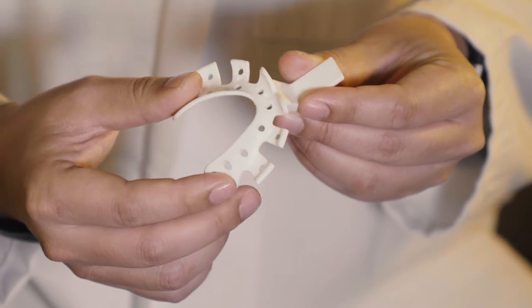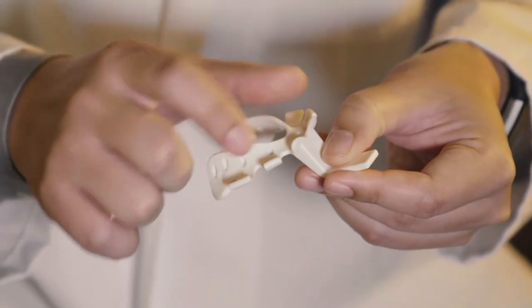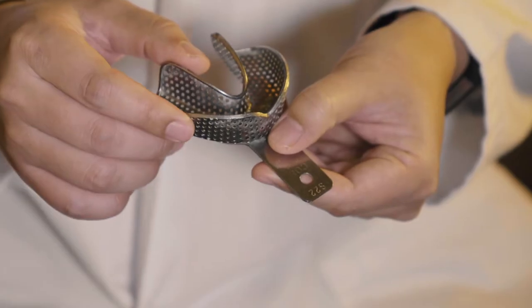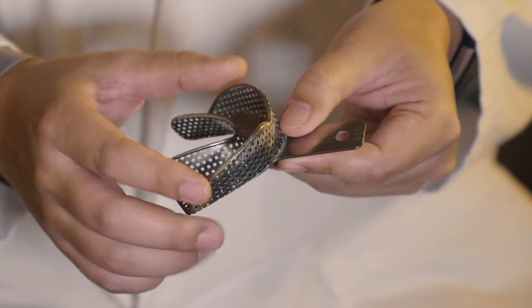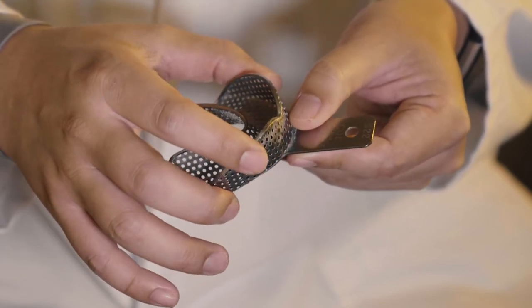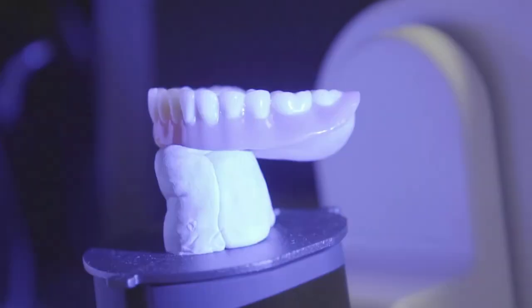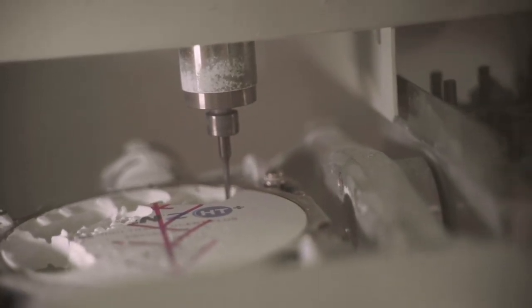This is a thermoplastic impression tray I actually invented myself. What we can do is we can heat up some of these segments over here, and that'll make it so that this will be bendable and we will mold it to the shape of your mouth. That's different from a traditional tray, which is metal, that we're not able to actually get to the form of what your mouth looks like. So after the first impression, we will scan the cast in-house where we will start 3D printing a set of custom impression trays.